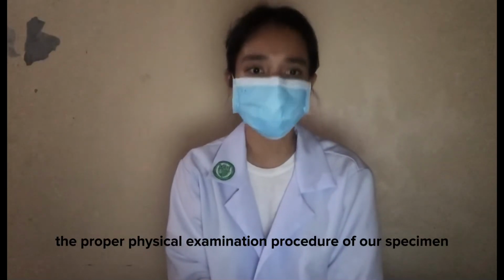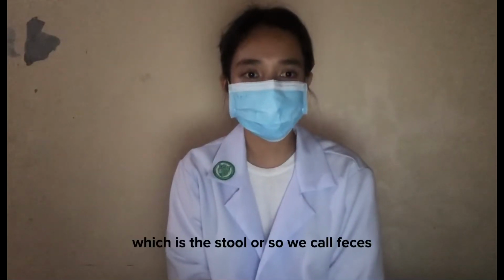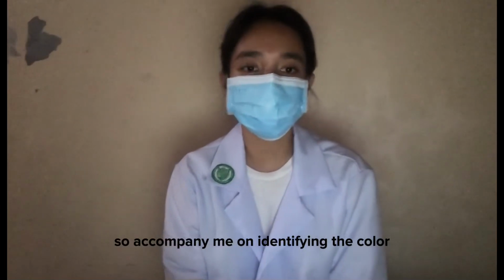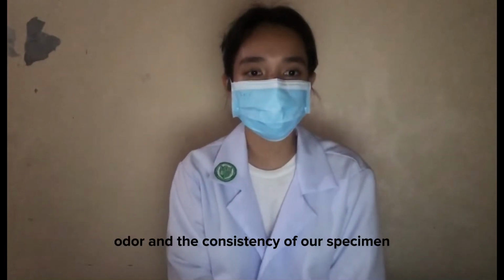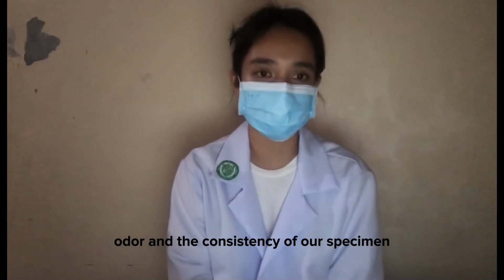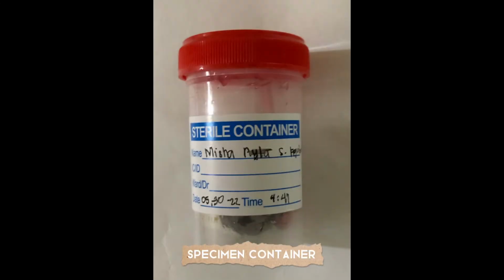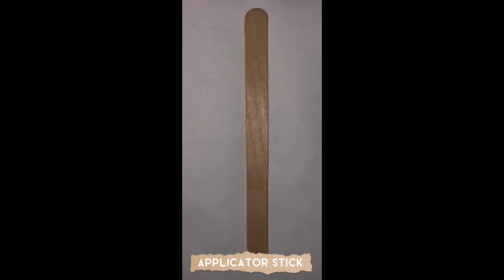So for today's video, we are going to perform the proper physical examination procedure of our specimen, which is the stool, or what we call feces. Accompany me in identifying the color, odor, and consistency of our specimen. The materials that we need are a specimen container and an applicator stick.